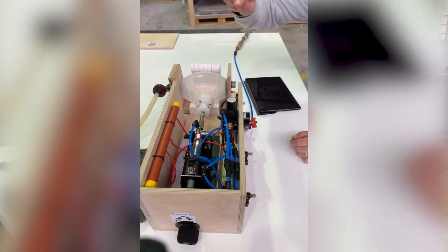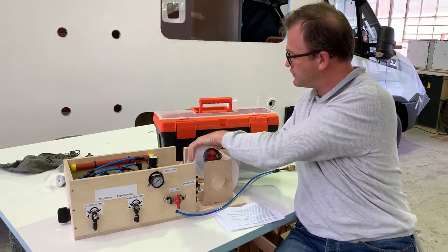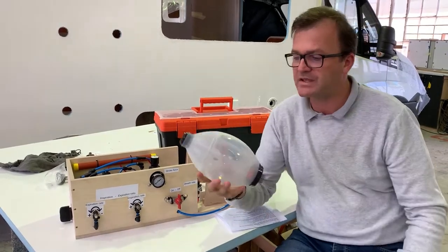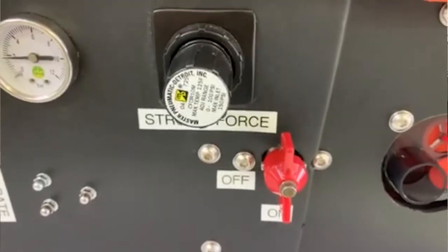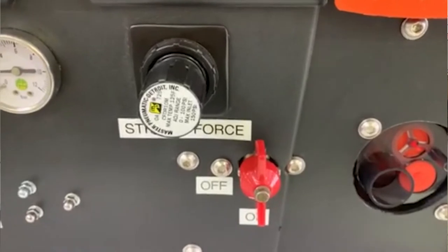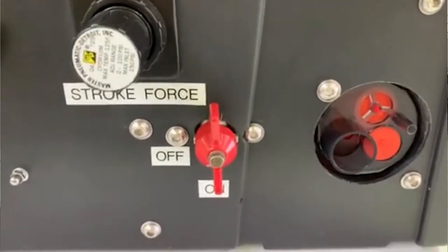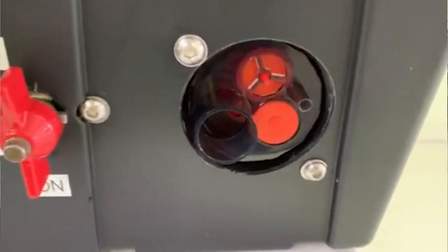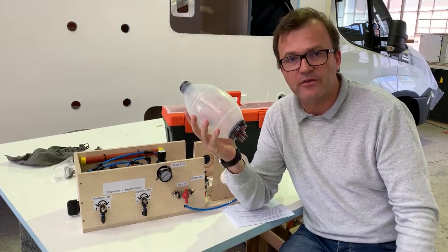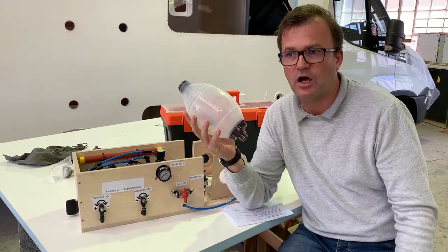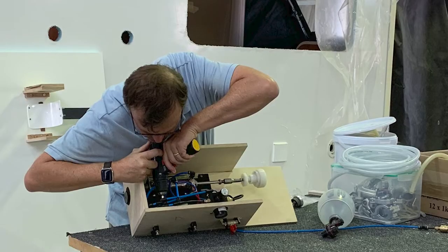A BVM is a device that medics use to squeeze air into a patient's lungs. What we're trying to do is create a device that nurses and doctors can walk away from and see to other people, freeing up medical staff.